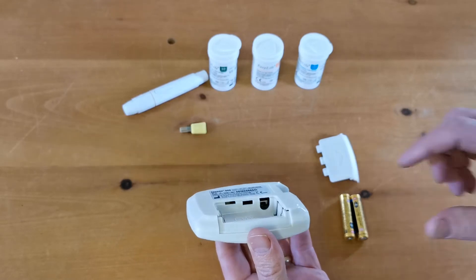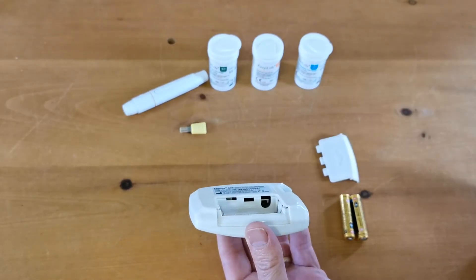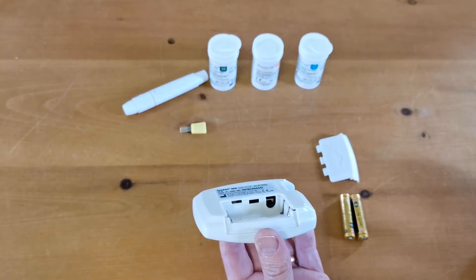For UK use, we recommend that with a finger or pen you just switch the meter over into the right hand position, and then the meter will display all its readings in millimoles per liter.